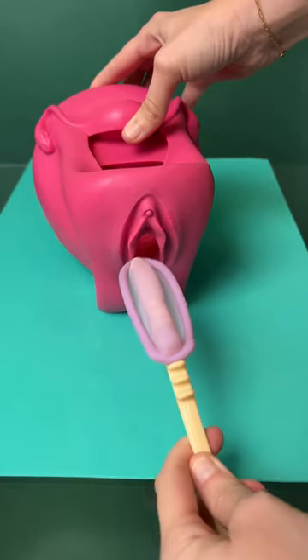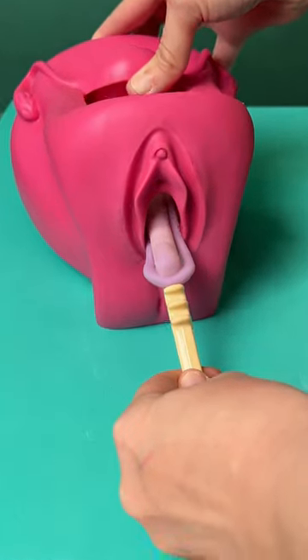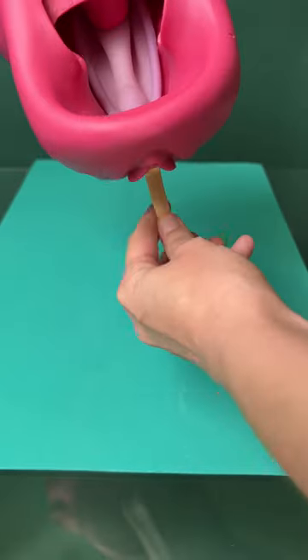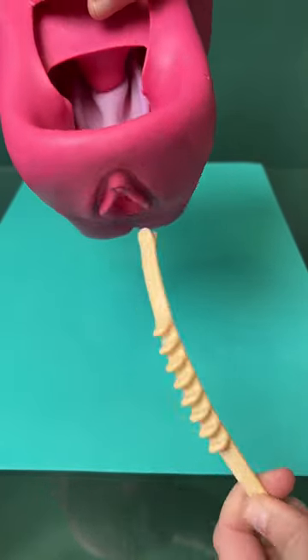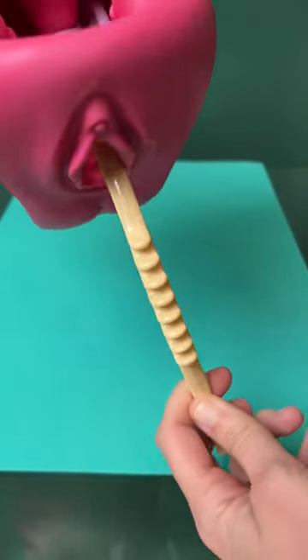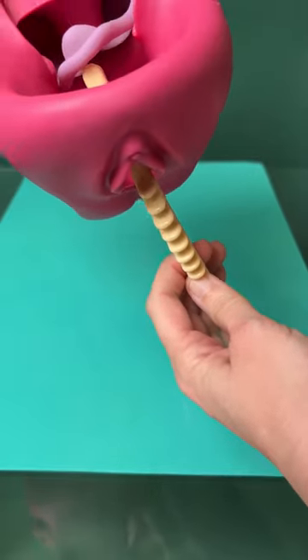So let's use this one that looks like half of one of those vintage hair clips. To insert, you are going to push into the vaginal opening and direct it to where it is under the cervix. Inside, you twist the inserter so that it comes off the hook and pull out. At this point it's hard to tell if it's all the way up, so I tried the tool to tuck it, but I think a finger would work better.